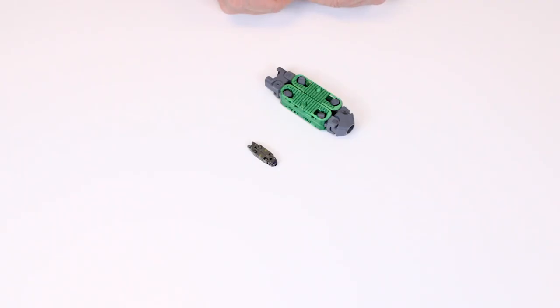The first thing to know when conducting a demo is how the implant, the Dual-X implant, actually works.